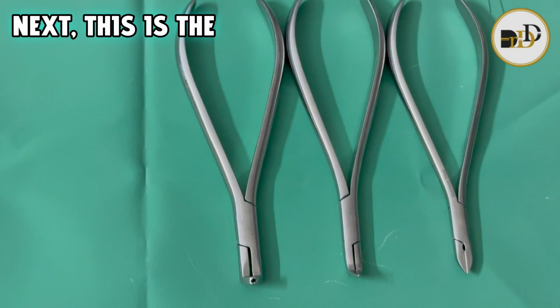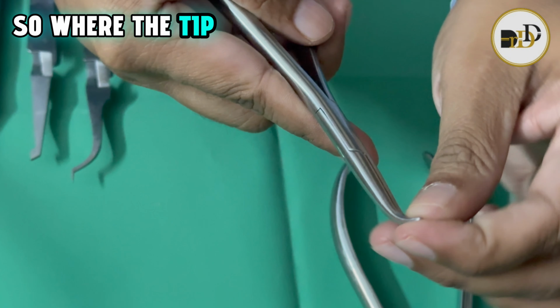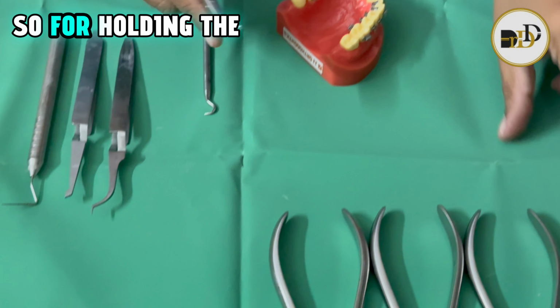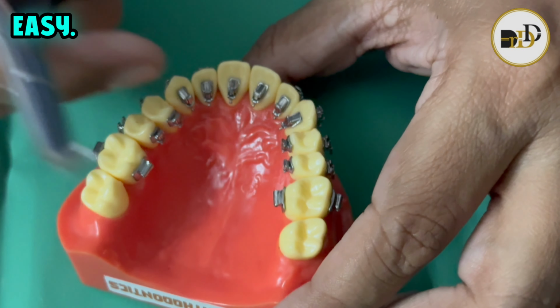Next, this is the weingart plier, where the tip is very narrow with a very long arm, so holding the wire and engaging it into the bracket slots becomes easy.